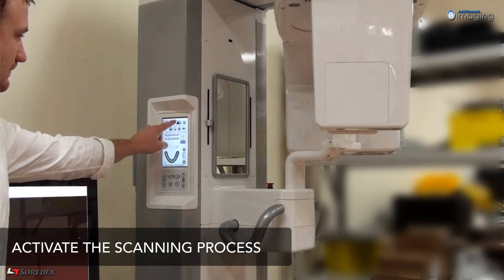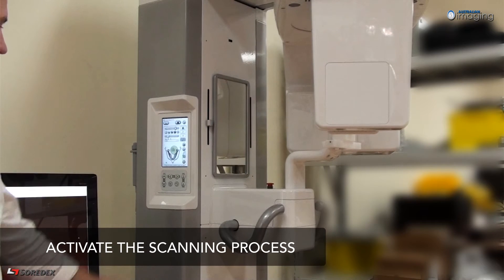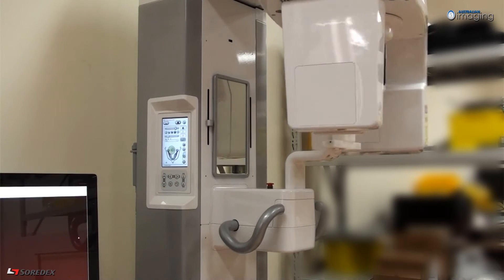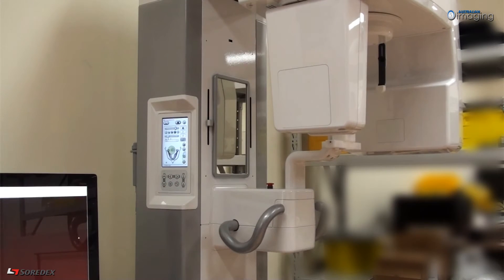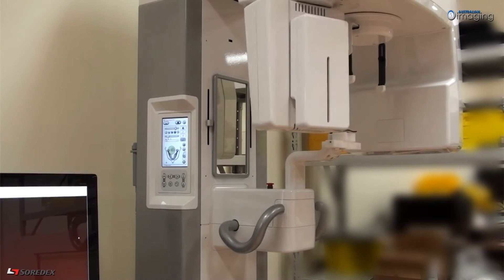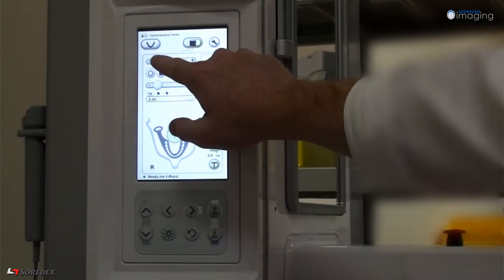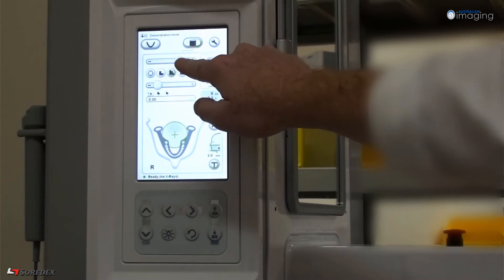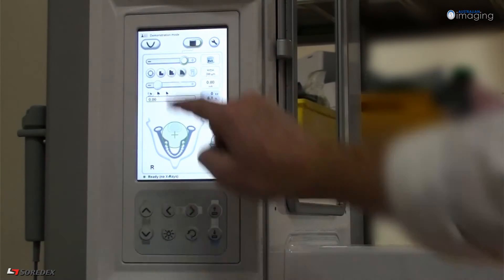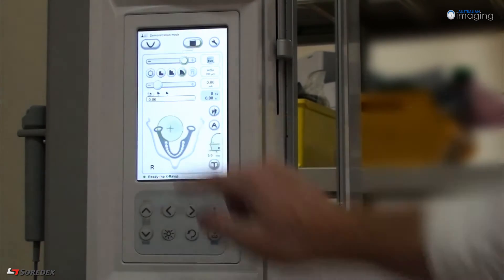On the unit screen, select the 3D modality and press the return button to rotate the 3D sensor into position. Choose your desired field of view, your required exposure level, and then pick your region of interest on the dental arch.